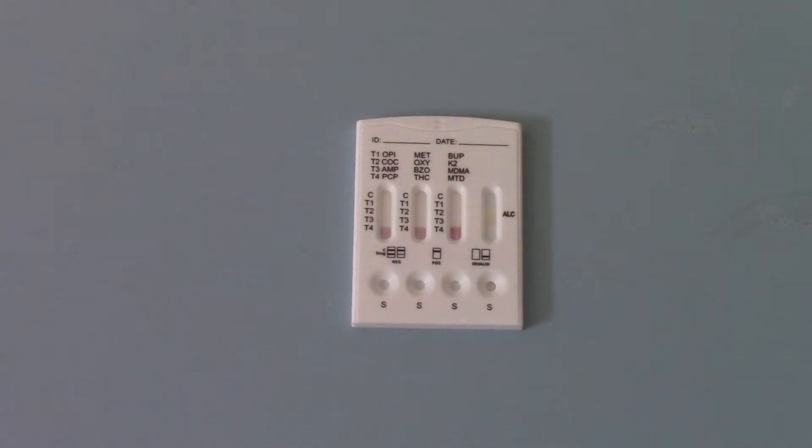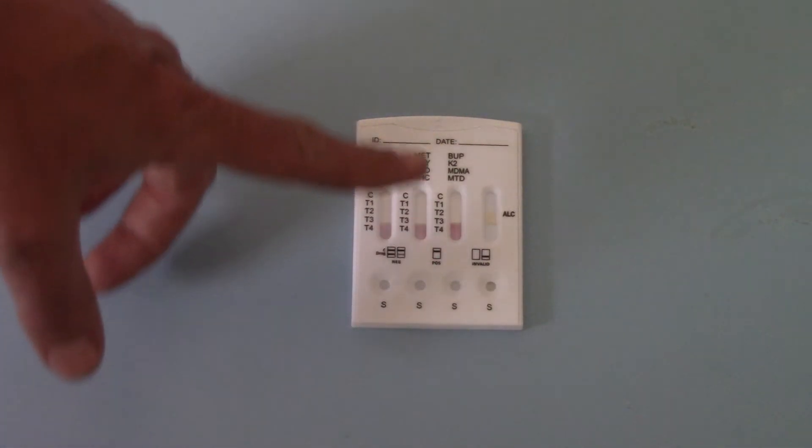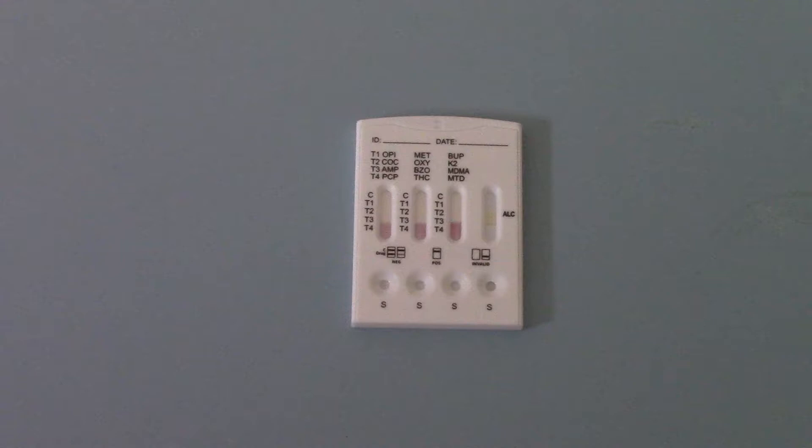You've got to start your timer now and you're looking for five minutes to elapse, by which time the pink dye should have travelled all the way up the results window.